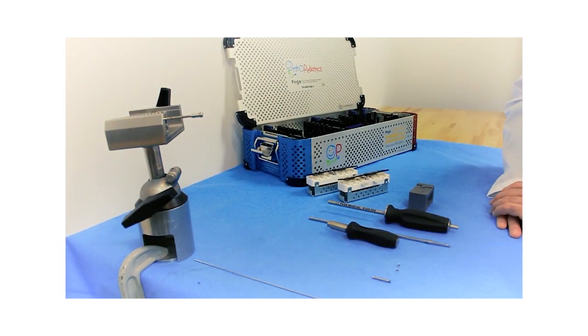Hello, this is an explainer video for the new Female Retriever FRT200, part of the Rescue 3.0 system for FD removals. First, let's start to describe the instrument.